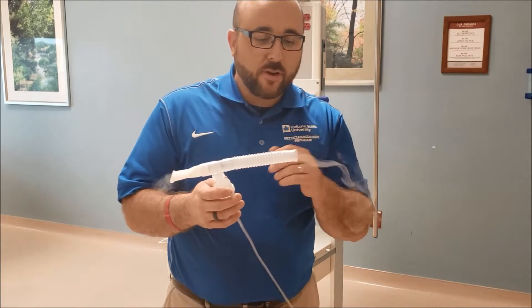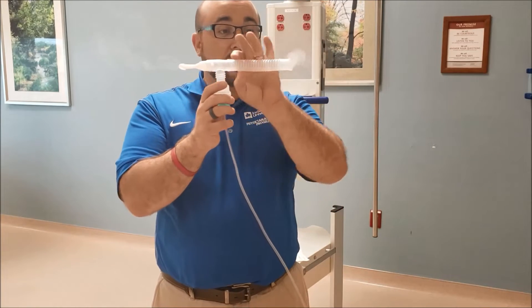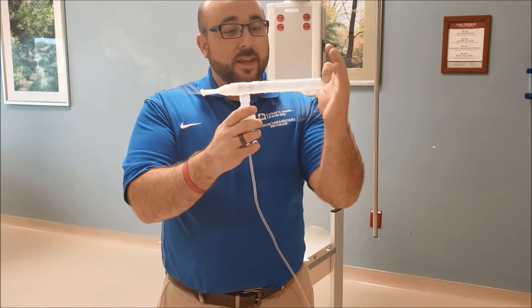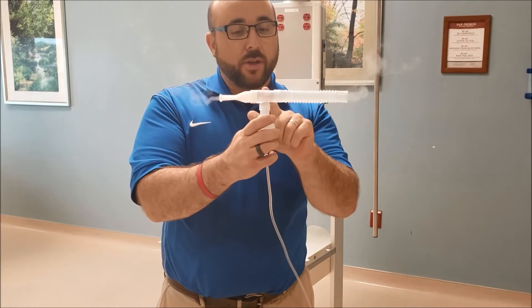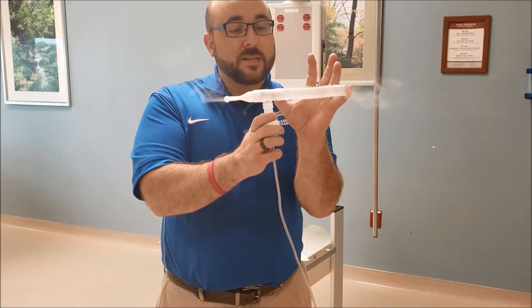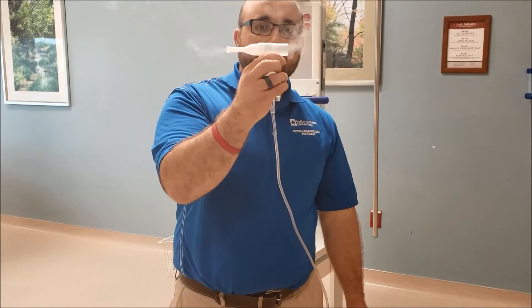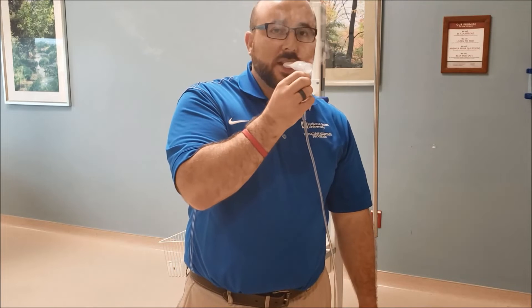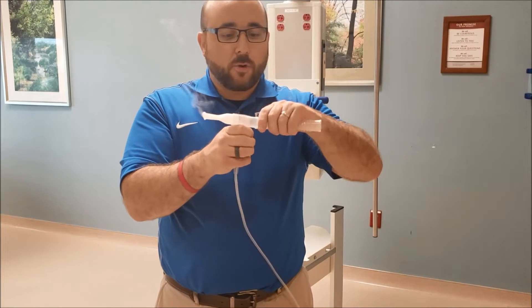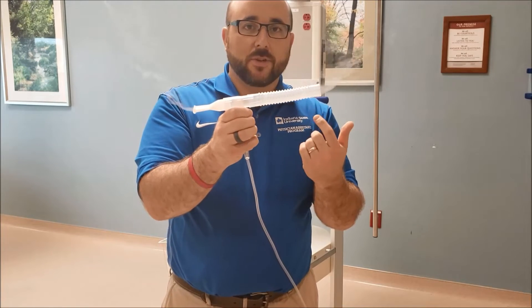Notice a couple of things. When I breathe in, you're going to see the mist go in. When I breathe out, you should see it shoot out quickly. When I take the breath in, this reservoir works because I'm not only going to get the medication from the nebulizer — I'm going to get nebulized medication that's held in the reservoir as well. Without the reservoir on, we would get less. So it actually allows you to get more medication, which is great.